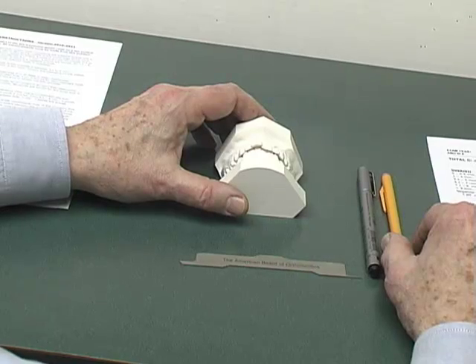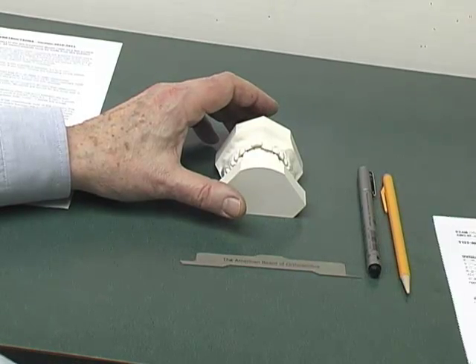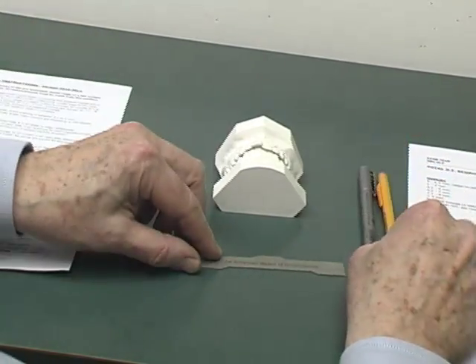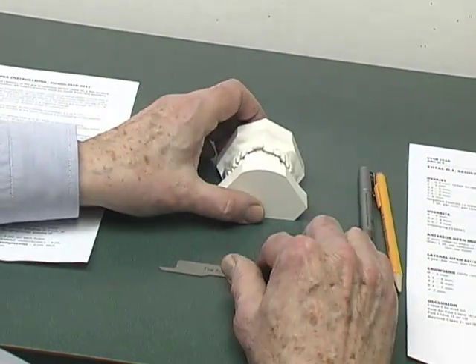I will be using several different pre-treatment casts, since one set of records will not demonstrate all the different categories and some specific aspects that I want to share with you. For your best visualization, I am going to place the camera over my right shoulder — a view not unlike what you would have if you were here in the room with me observing as I measure the casts. Here is the DI form, the instructions, I have nearby also the pencil, the ABO gauge, and here is the first set of casts.